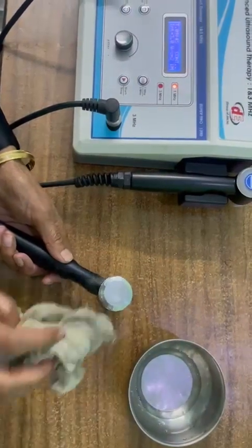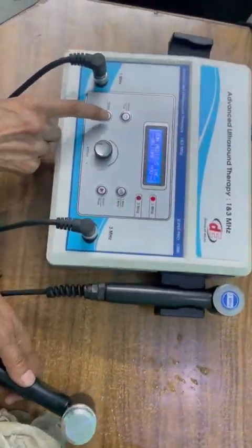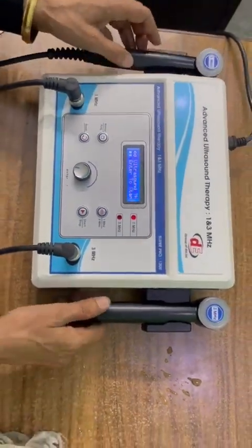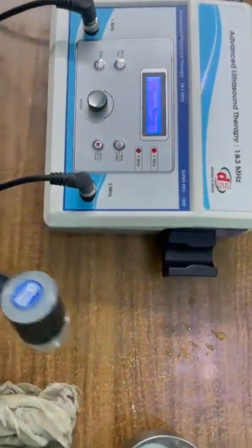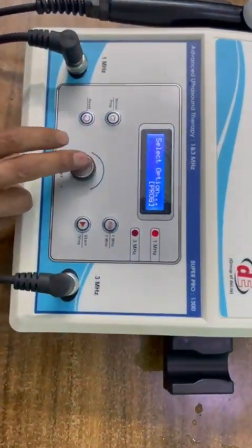Now we want to test in 3 MHz. Reset it. Now we test 3 MHz. This is 3 MHz. Press here. Manual mode in 3 MHz.